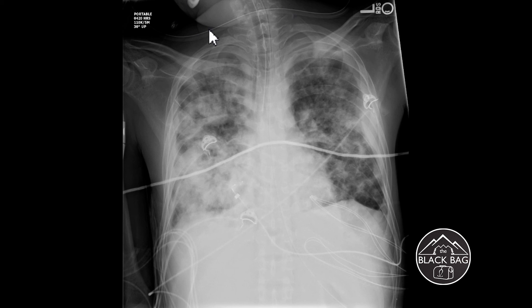You want to see the chin because you need to know the head position to assess whether the ET tube is appropriately placed. If the head is neutral and the tube is at least a couple of centimeters above the carina, you're okay. If the head is flexed or extended, that affects where the tube sits — it might be too low or too high. The first post-intubation x-ray is also to confirm you haven't inadvertently caused barotrauma or developed a pneumothorax, and in this case the film is fine.